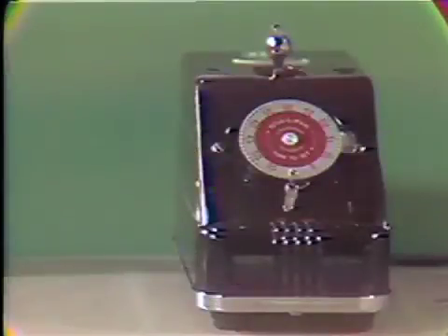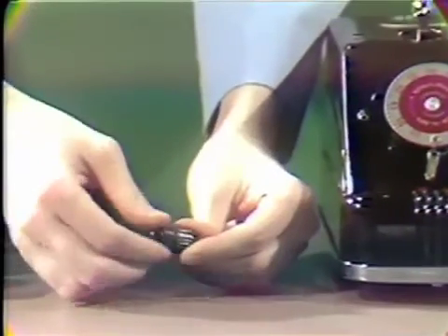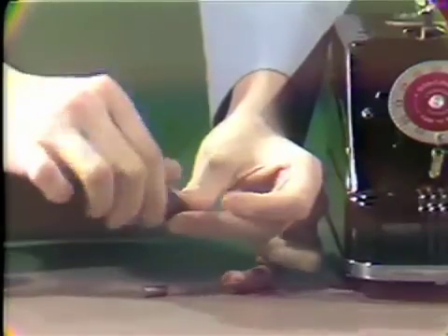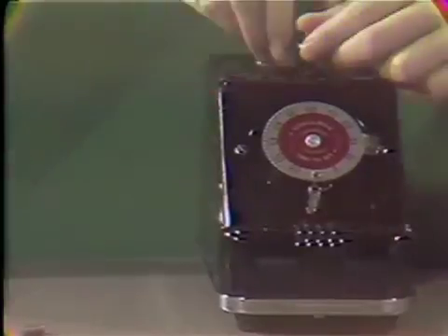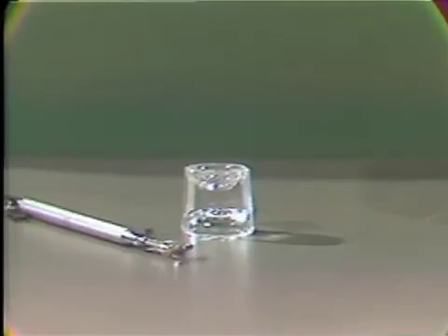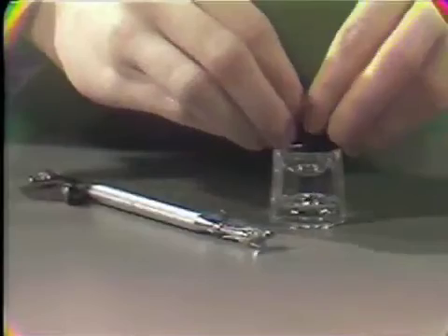When using the non-disposable capsules, take the mix one step farther. Remove the capsule, open, and remove the pestle. Re-secure the top and place in the amalgamator. Turn the timer to the on position and release. This process is termed mulling. Mulling will gather the amalgam into a ball and help to ensure the capsule is left free of amalgam particles, as well as enhance the mix. Again, place in the dappen dish and load the carrier.